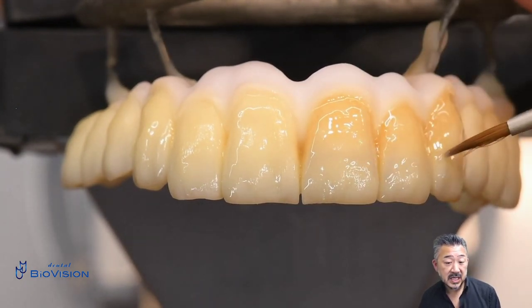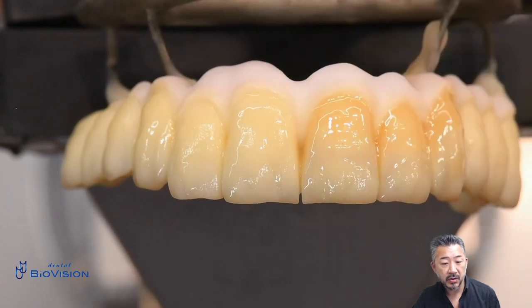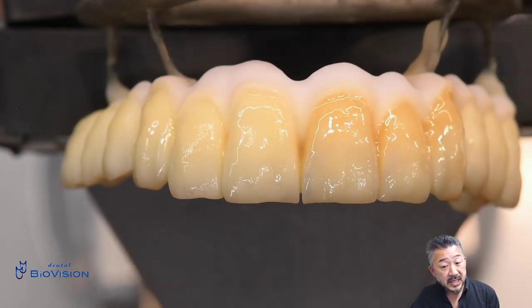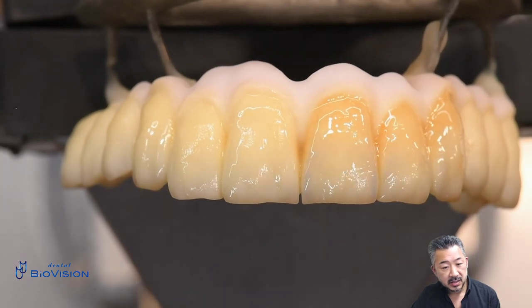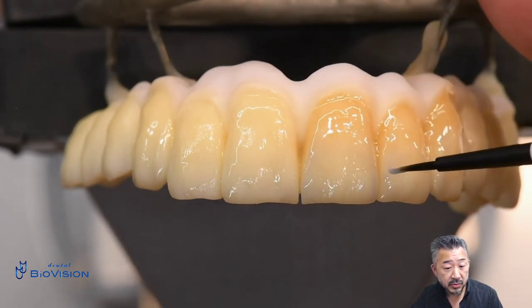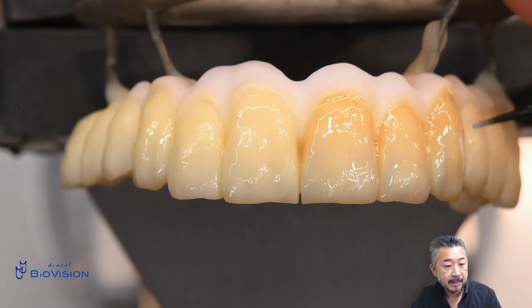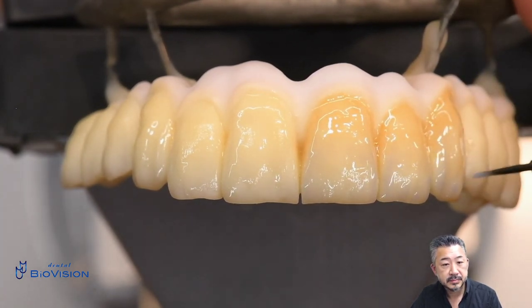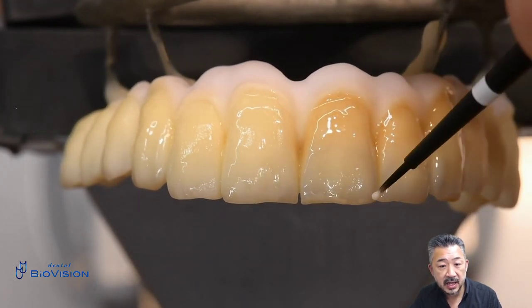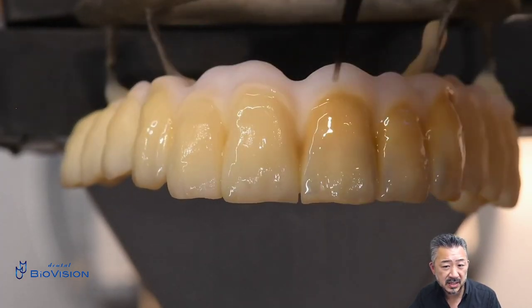Depending on the case, a warm-colored paste which contrasts with the purple color is applied nearby to prevent it from becoming dark as a whole and to reproduce a sense of transparency. Apply blue paste to the incisal edge and mesial edge — but be careful, if you apply too much it will look unnatural. The blue is emphasized by thinly applying a warm orange color on both sides of the blue. Applying opaque ivory paste to the incisal edge and both mesial edges makes it possible to emphasize the shape of the teeth, with blue transparency at the incisal margin.